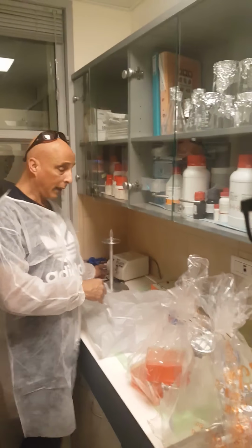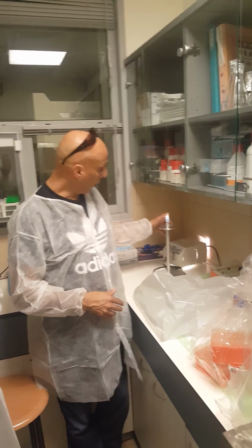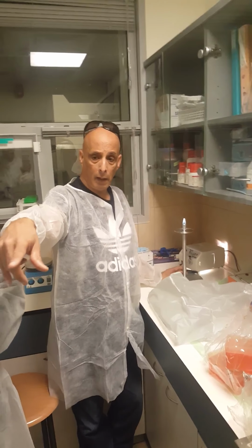Twice a week, we take the ovaries and put them on this trans illuminator. So can you shut the light down? Yeah. So any liquid that we have, we can see. So when we put the ovaries on it, we can see the follicle, because the follicle has a follicular fluid.